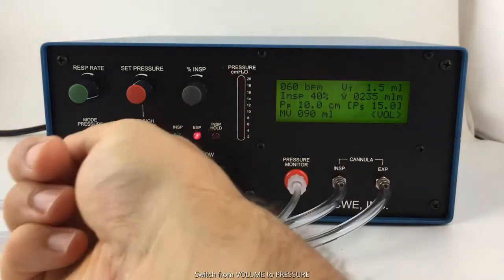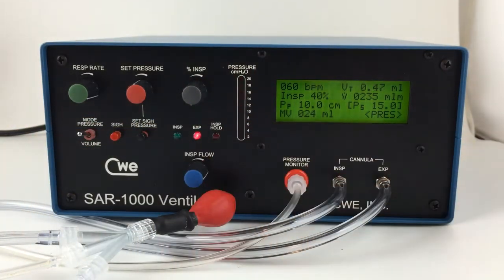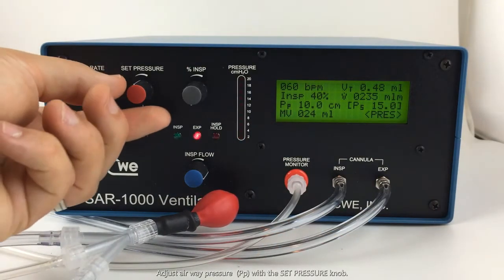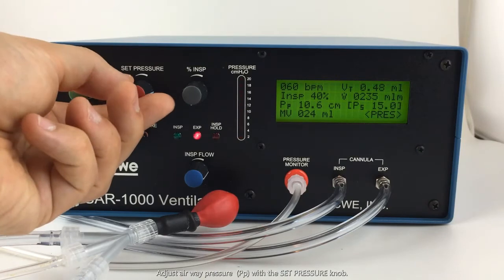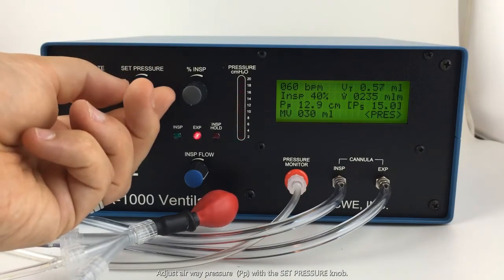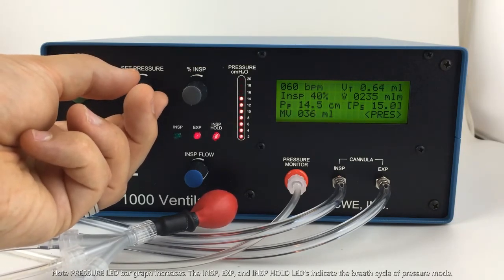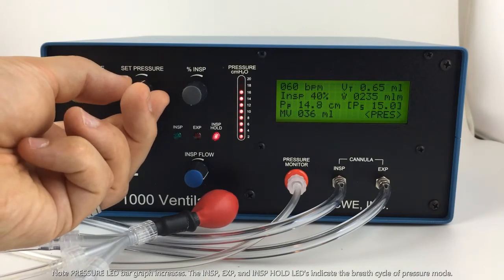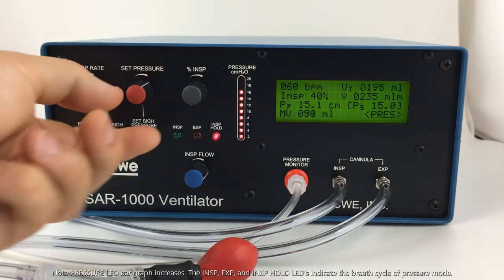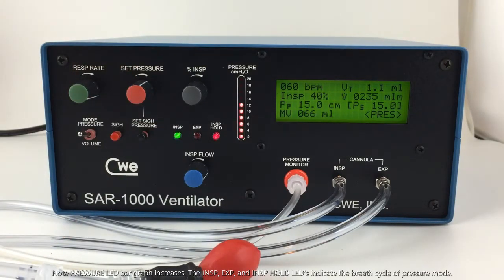To use pressure mode, change the volume/pressure switch to pressure. You can then adjust the set pressure knob for the desired inspiratory pressure. You'll note as I turn the set pressure up, the pressure bar graph increases to the desired amount.